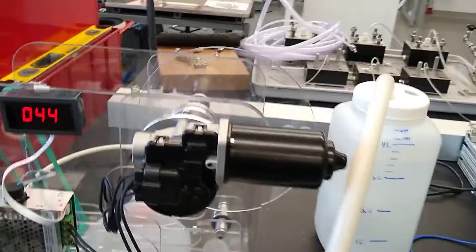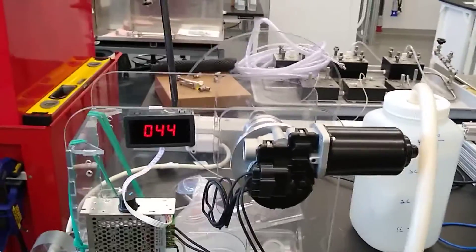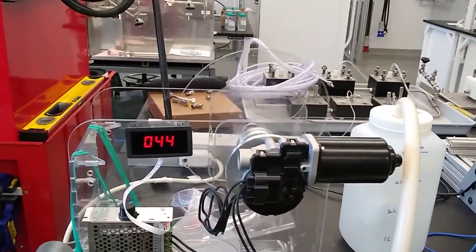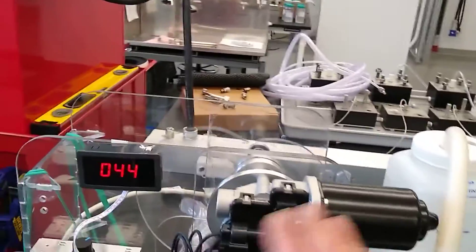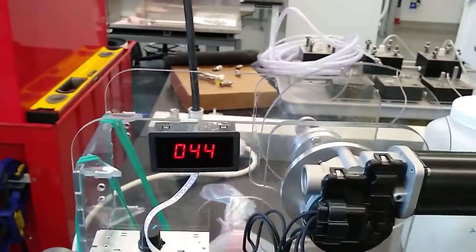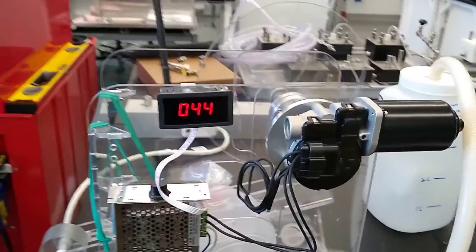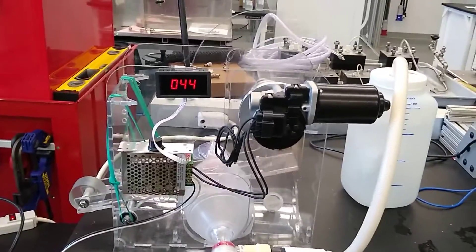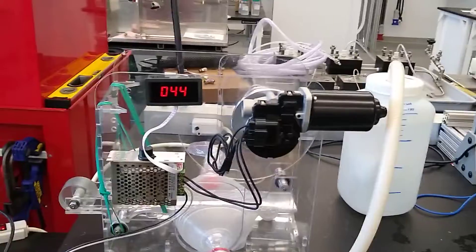This cam is providing about 400 milliliters of tidal volume. To control this, we have a controller here that can change the breaths per minute. Right now, this is set to approximately 20 breaths per minute.